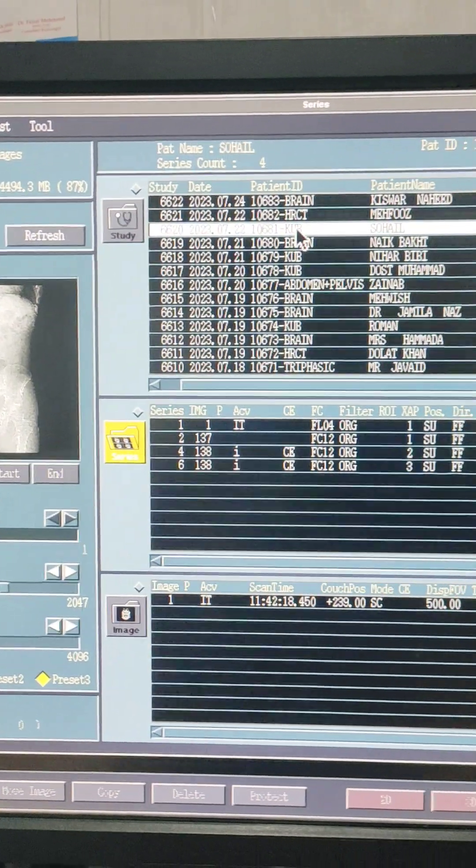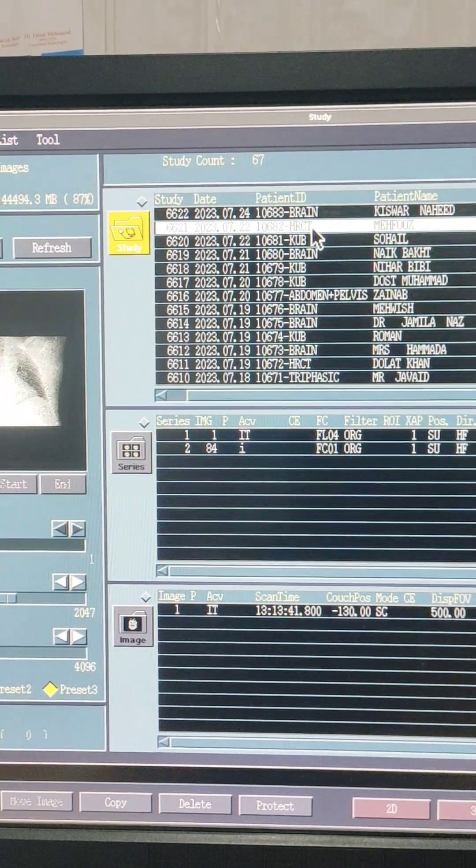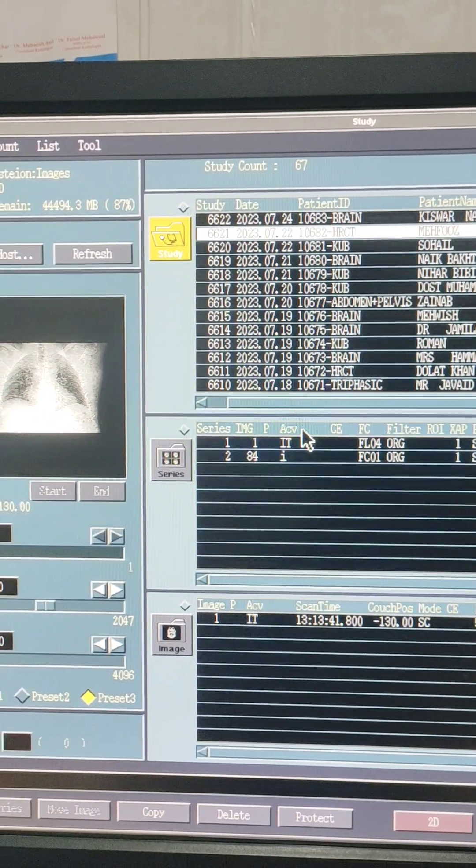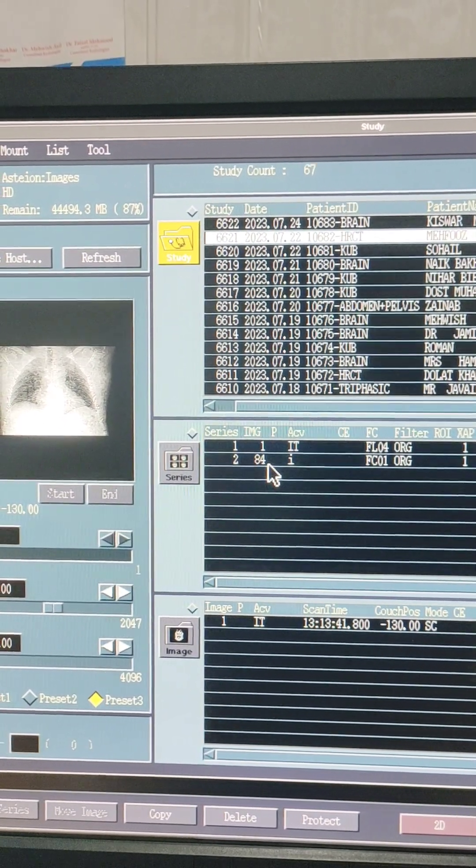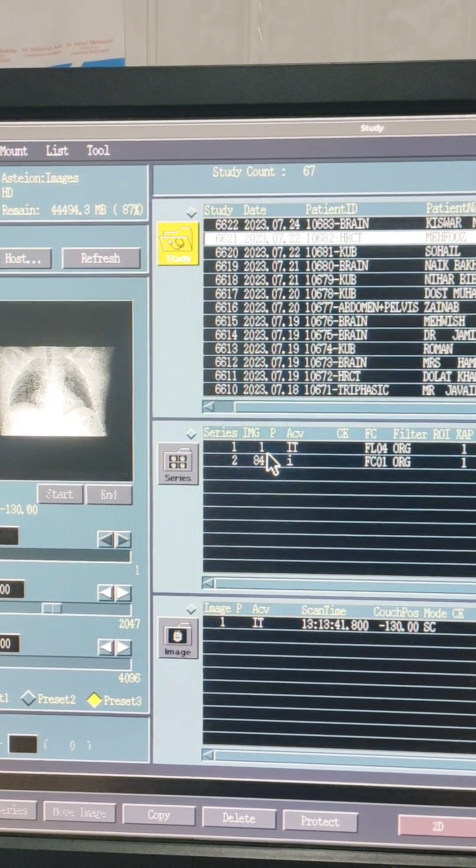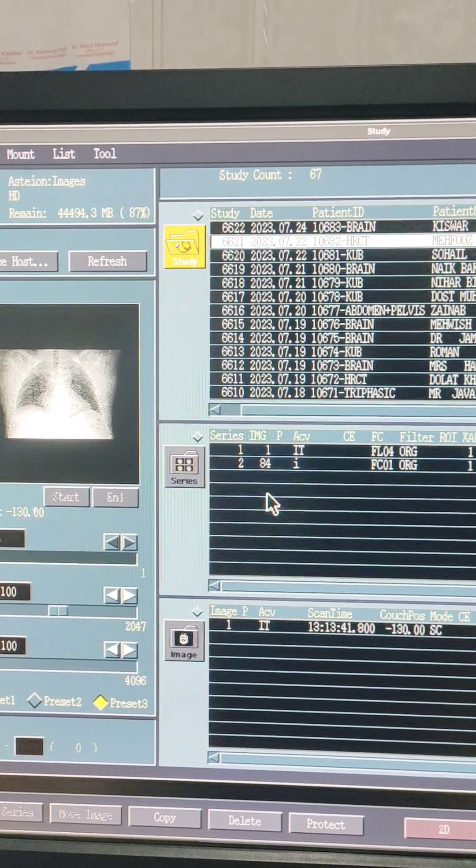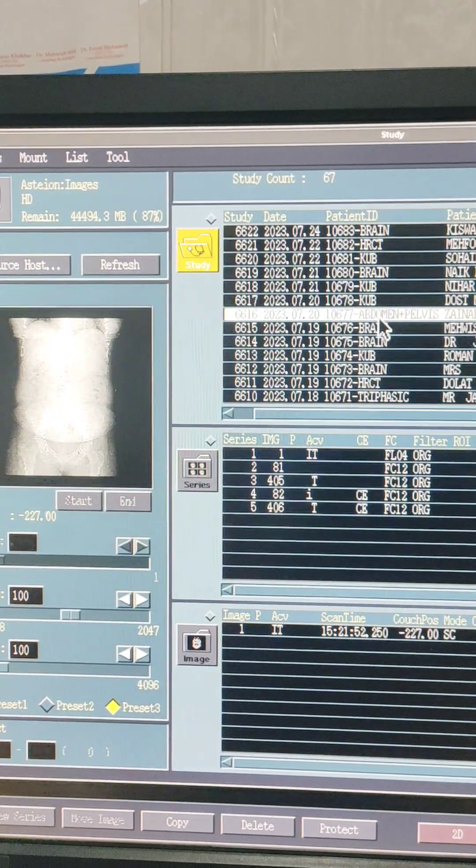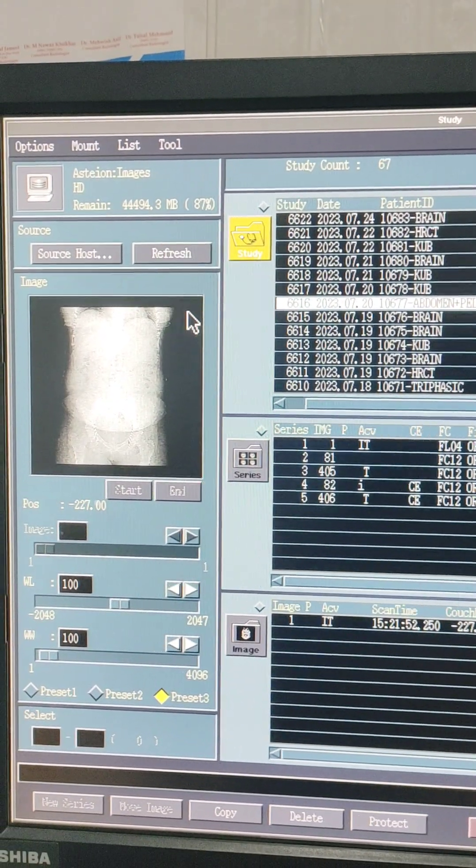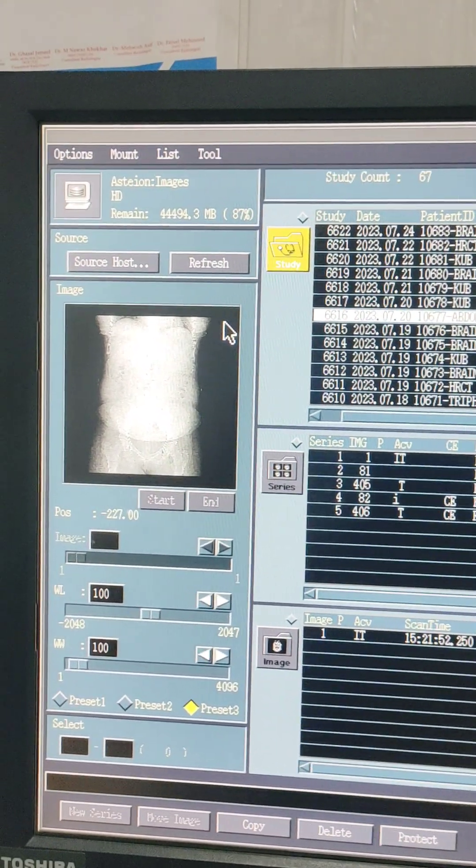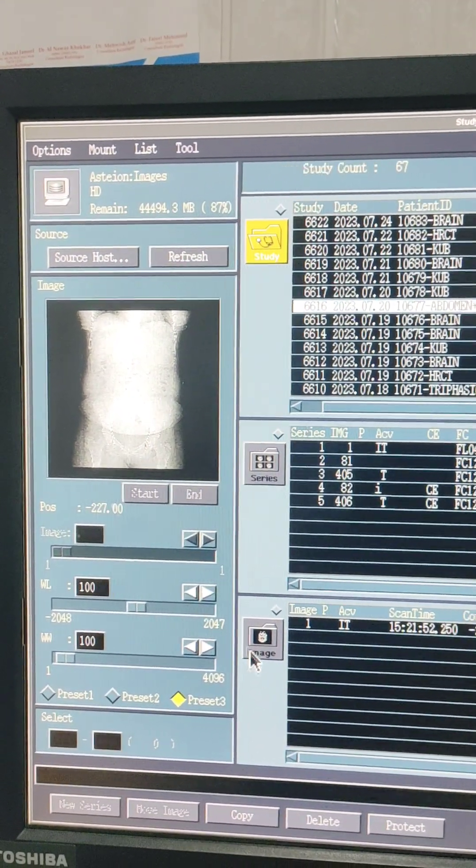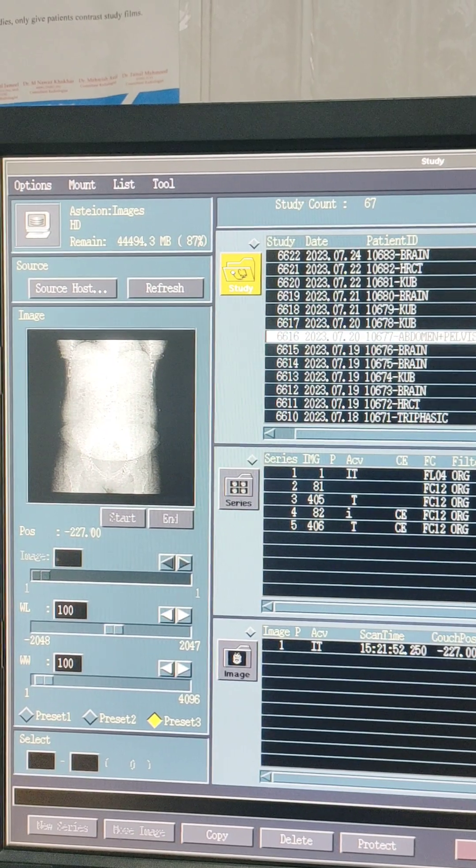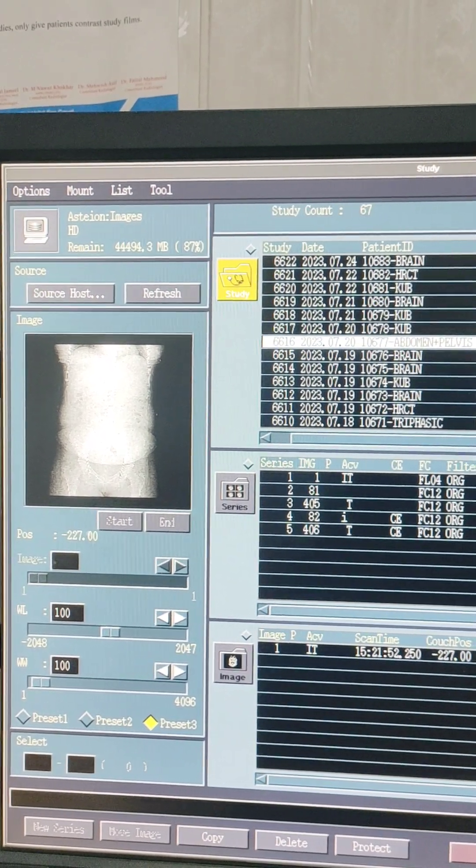You can delete your patient data like this. I have already deleted the patient secondary studies and all those coronal images. So this is how to delete scan data to save your drive before deleting the patient.